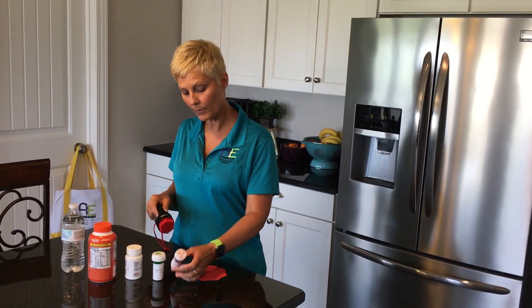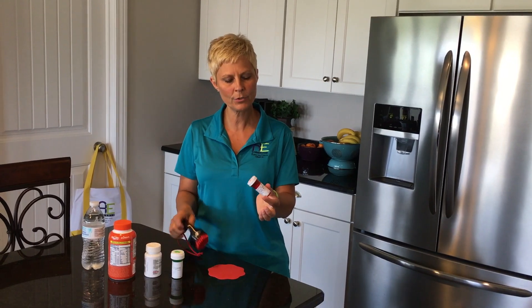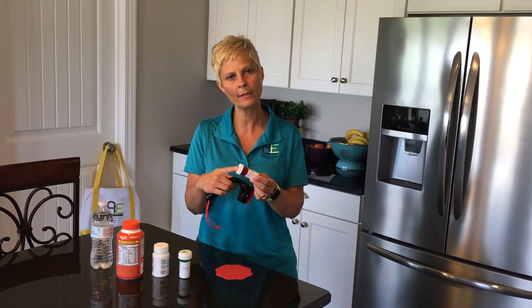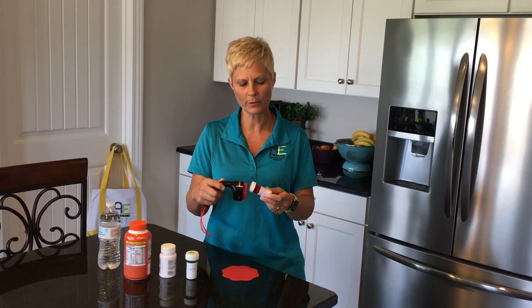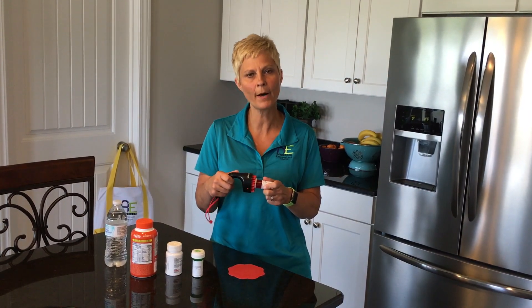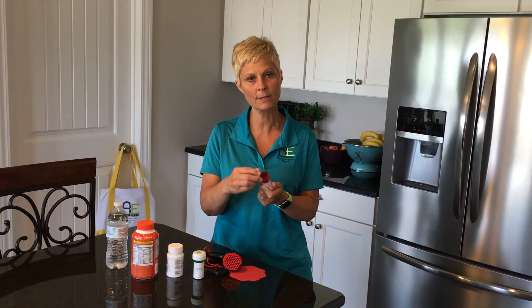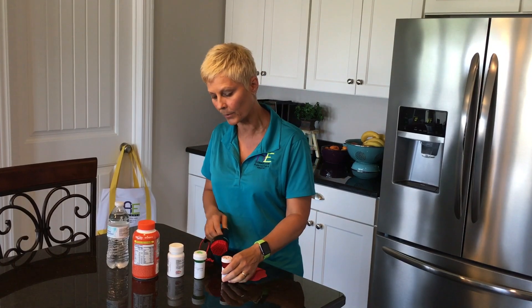Let me show you what I did with this small medication bottle — the one that's child proof. I held it in my hand like this, held the turner by the lever, put a very slight pressure inward on the bottle, and then I was able to turn it and release the lid. So that worked really well on this small bottle.